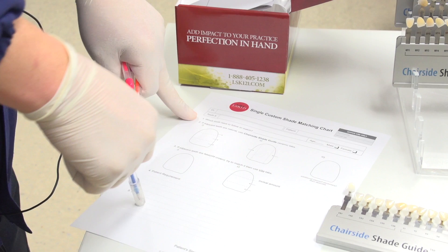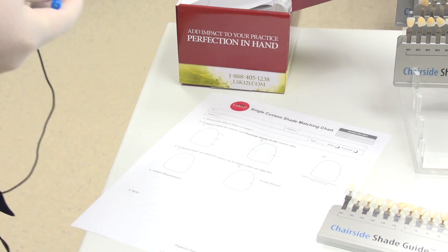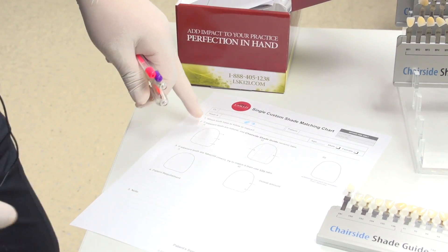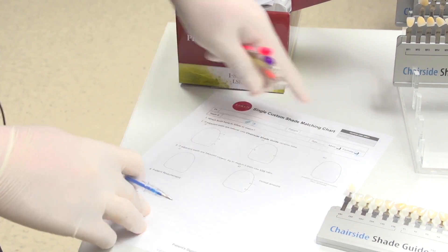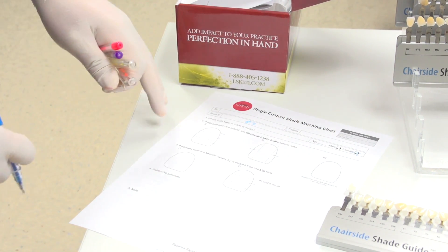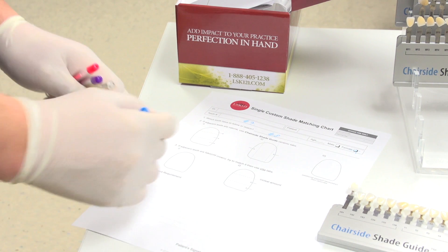This is our chart for shade matching a single anterior tooth. I indicate the doctor's name, the tooth number — which is number nine — patient's name, age, gender, appointment date, and final finish date. My staff also need to note which tooth to follow or match, which is number eight.